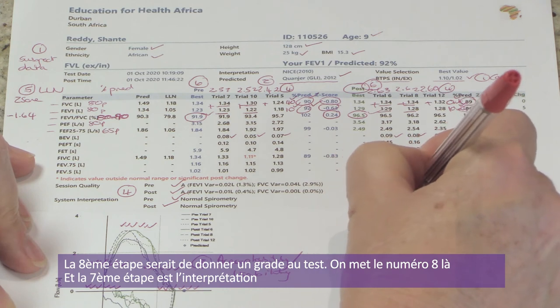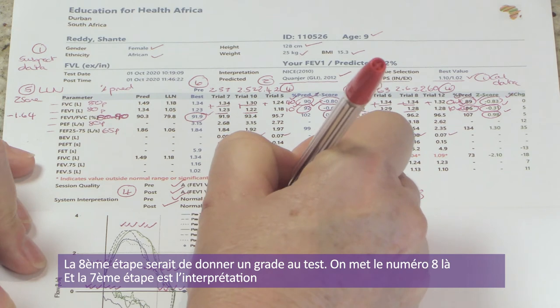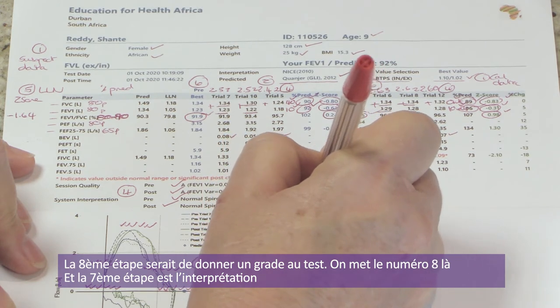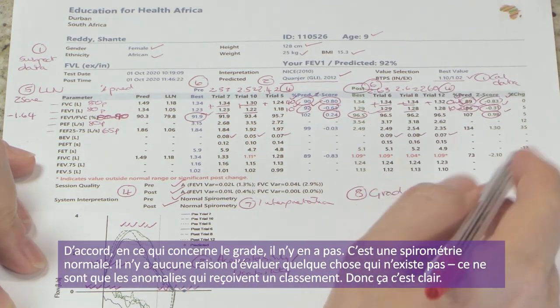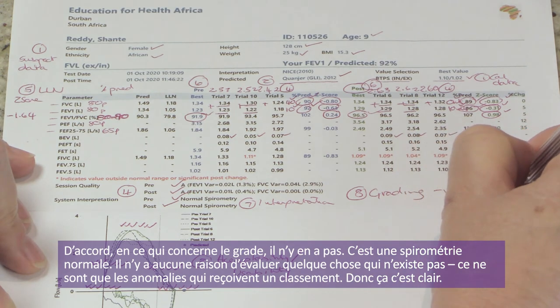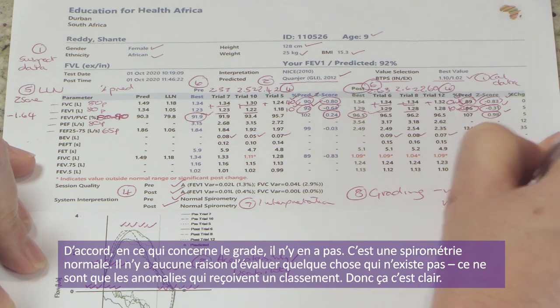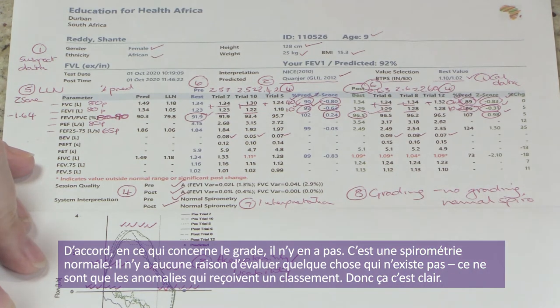Step eight would be to grade the test. There's no grading because it's a normal spirometry test — you would only grade an abnormality. If grading were needed, you would use the FEV1 percentage of predicted or Z score with a grading table.